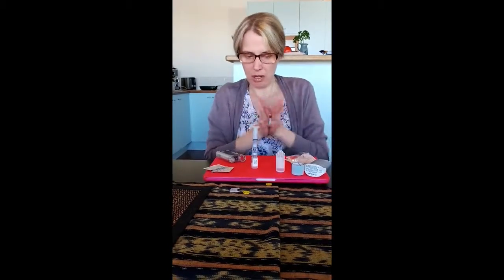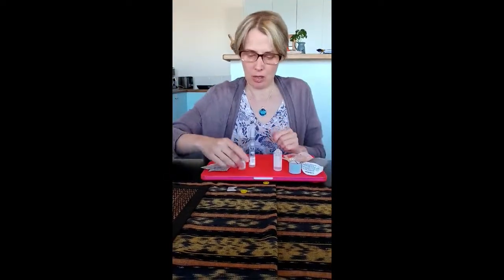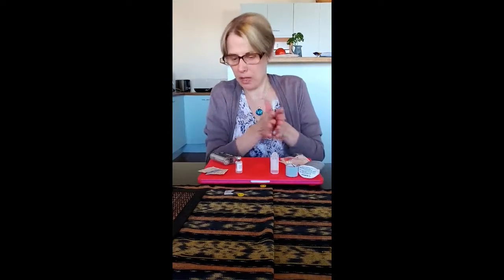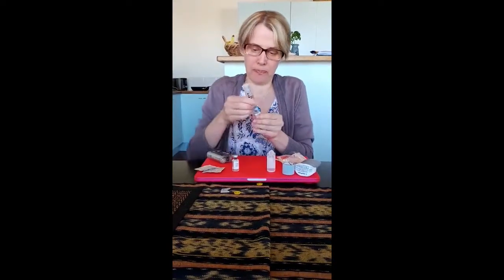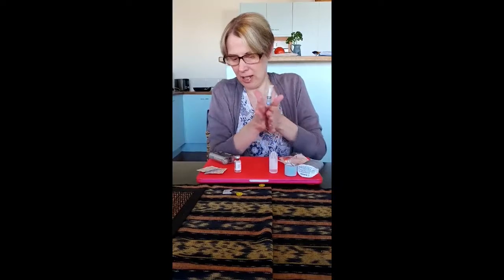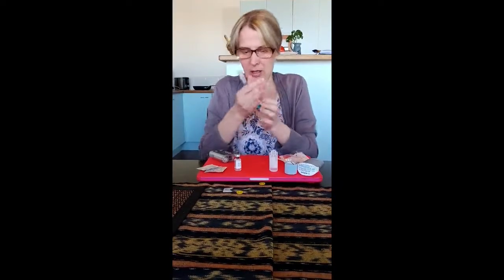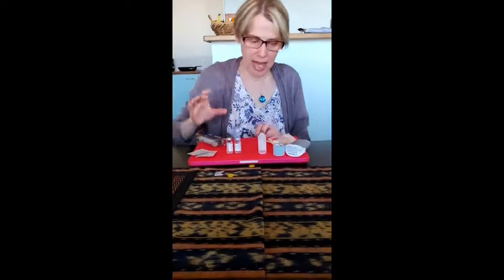Obviously if the reservoir is on it, it's not as easy to roll. Sometimes I'll do this and then go take a shower so I know it will be dissolved when I get out — I sometimes prepare it and then it'll be nice and ready to go into my pump. I'll just check — those are dissolving nicely. Sometimes you get white chunks you're looking for, but this one is pretty much totally dissolved now.